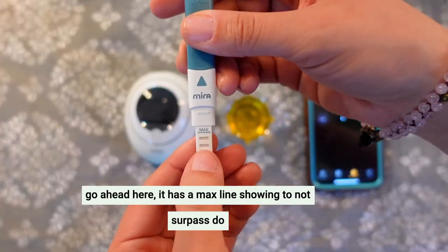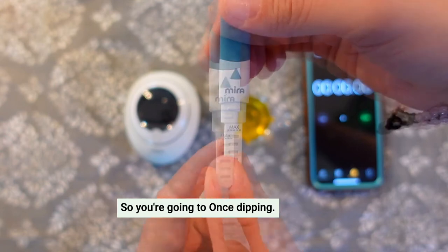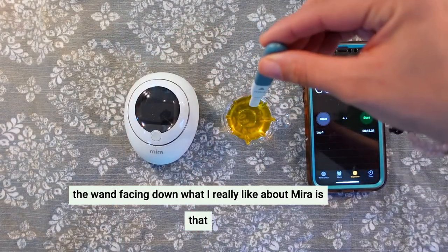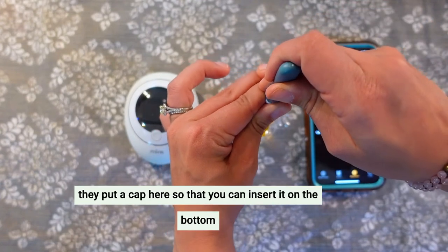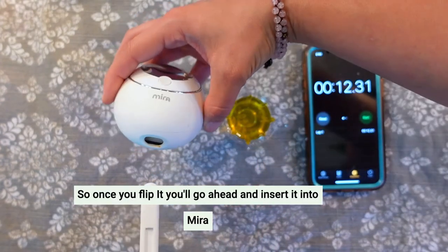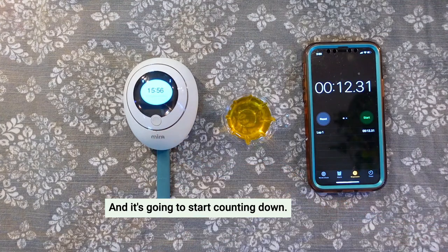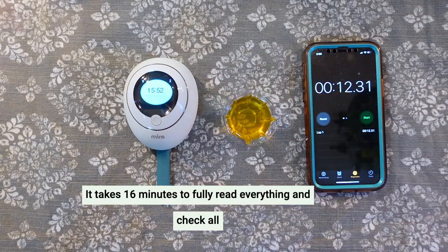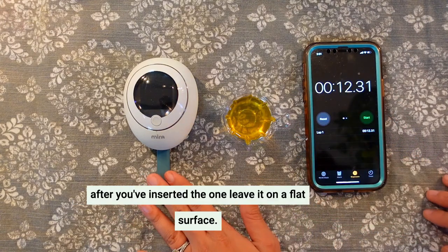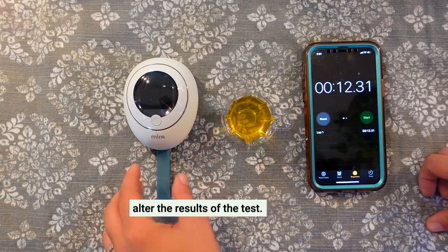The wand has a max line showing how far not to surpass — do not dip your wand in past the max line. Once dipping, you only want to leave it in there between 10 to 12 seconds. Once done dipping, you definitely want to keep the wand facing down. What I really like about Mira is that they put a cap here so that you can insert it on the bottom and keep everything sanitary. Once you flip it, go ahead and insert it into Mira. It is going to start counting down. Leave it on a flat surface — do not pick up the wand, move it around, or flip it, because you do not want to do anything that might alter the results of the test.